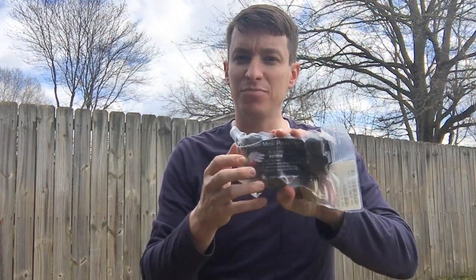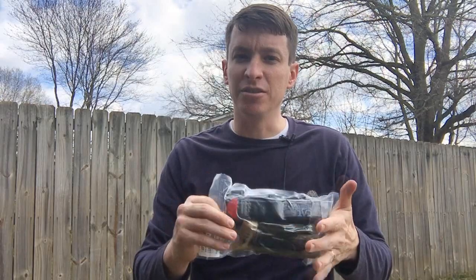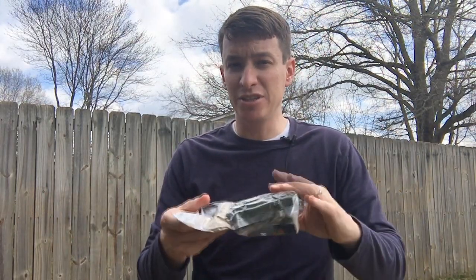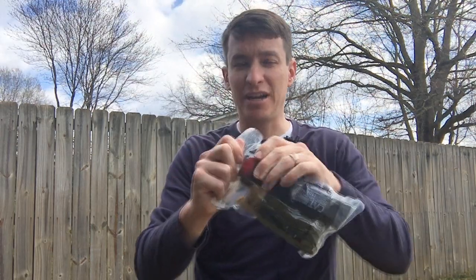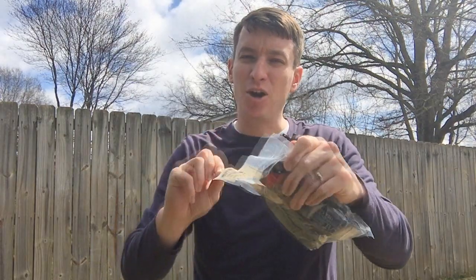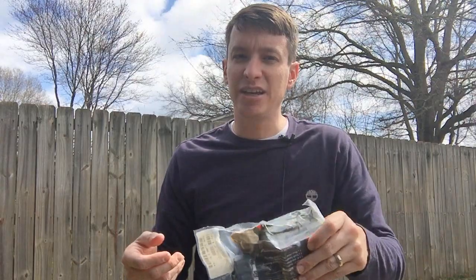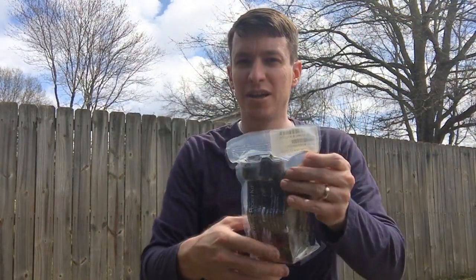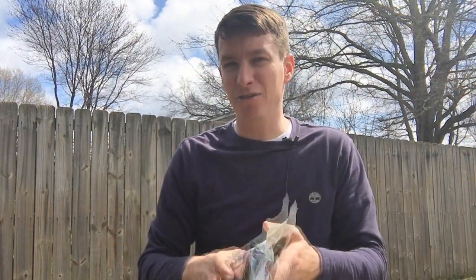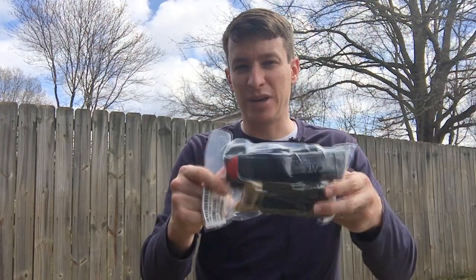This kit comes in a sealed plastic bag — it's sealed airtight. Of course, the moment you open it up it's no longer sealed, but nothing's going to expire in here. If this is going to be your primary kit, I would go ahead and open it up, because under stress you don't want to be worried about trying to open this and get everything out of the package. If this is your secondary or backup kit, leave it just like this, keep it nice and organized. But you can open it up and have everything ready to deploy, because under stress you may have a hard time opening this bag.